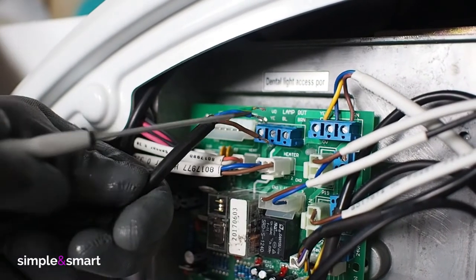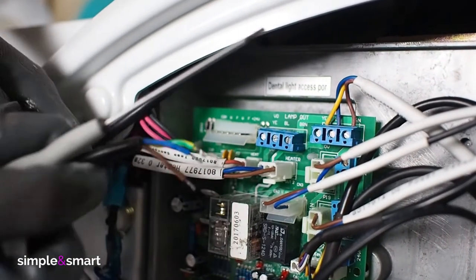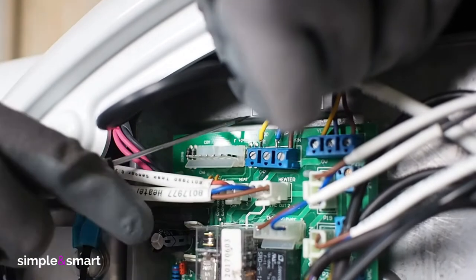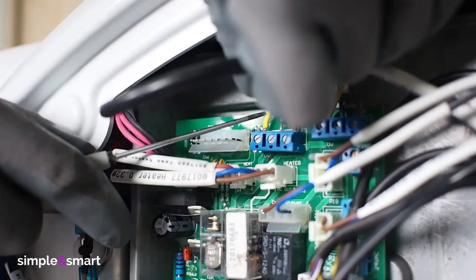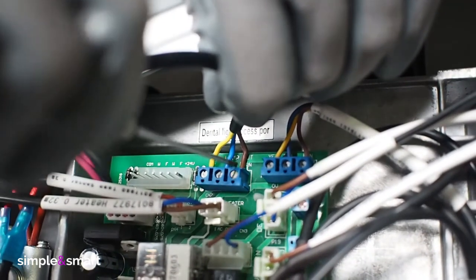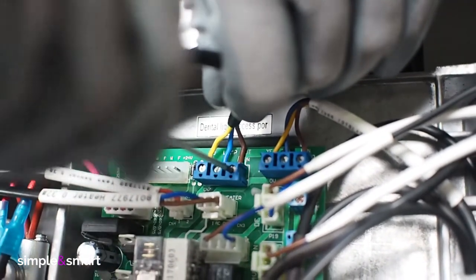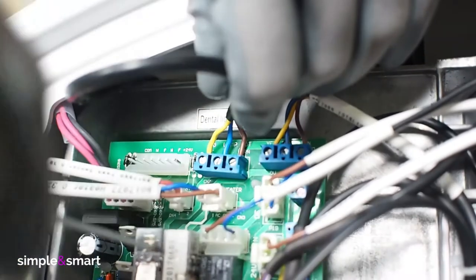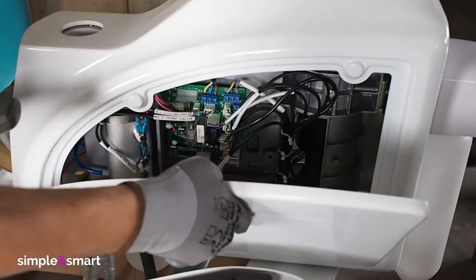Insert the wire into the right side of the water unit and join the arms to the pole. Connect the lamp's wires that you have just inserted into the water unit board following the color indicators. If you have an LED lamp, just connect the two wires you find on the blue connector of the board or to the connectors previously installed by our technician. Close the right side of the water unit.